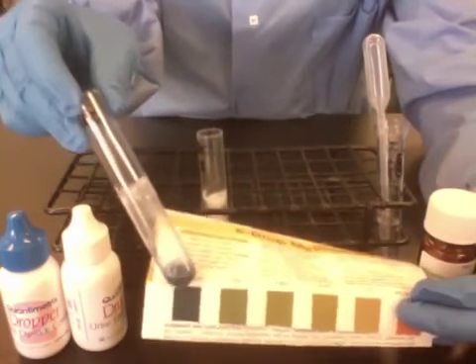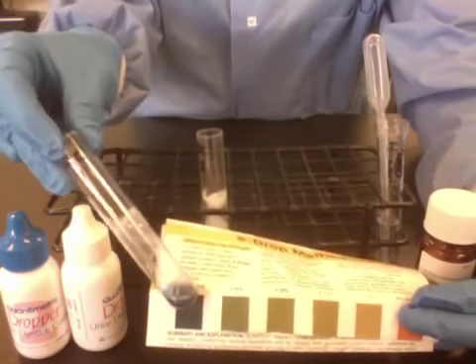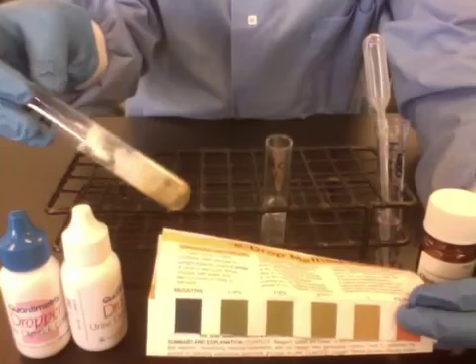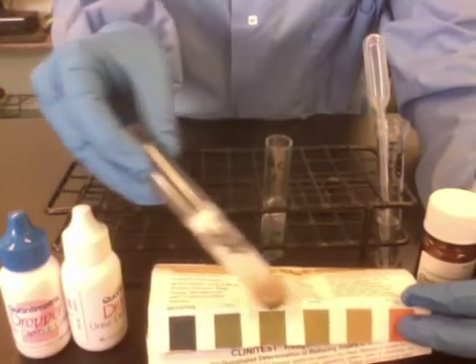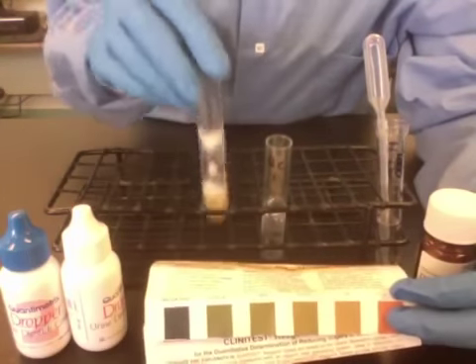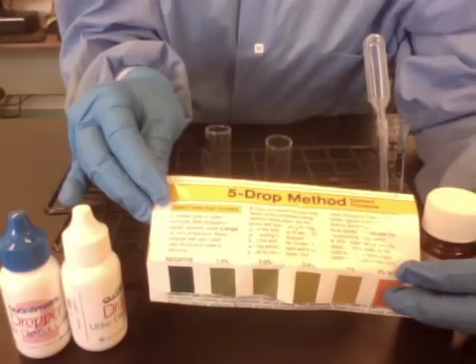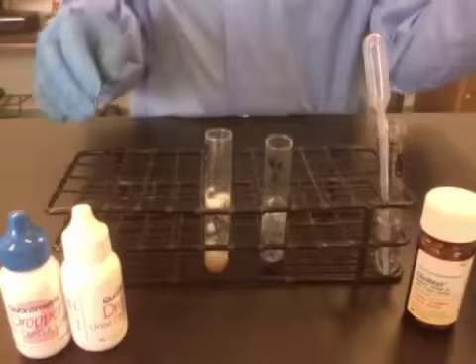Here I'm comparing QC1. A blue or cobalt dark blue result is negative. A positive result can be compared to the other colors on the chart. Some labs report results in percent and some labs report on a grade of 1-plus to 4-plus. And that's the Clinitest.